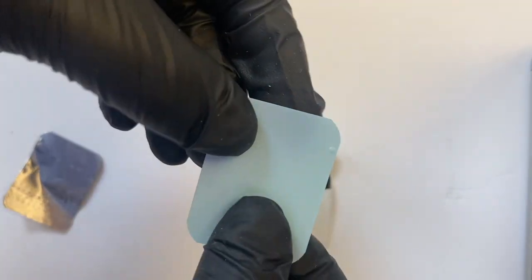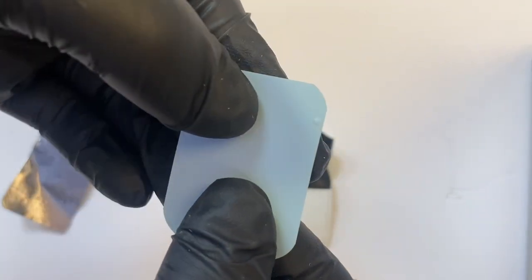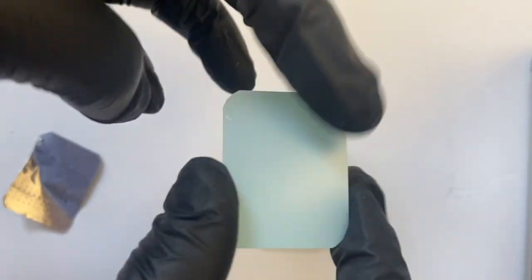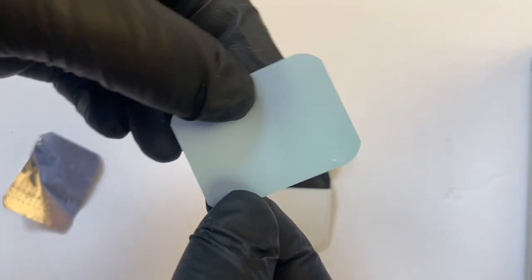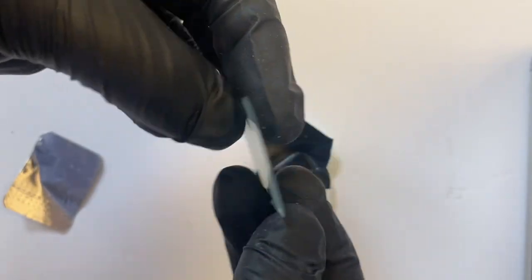You can also see film has a little dot on it in the corner. That helps you orient it, because if it didn't have that dot, how would you know which side is the correct side? You want the dot up, and that'll help you be able to tell which side the X-ray is correct.